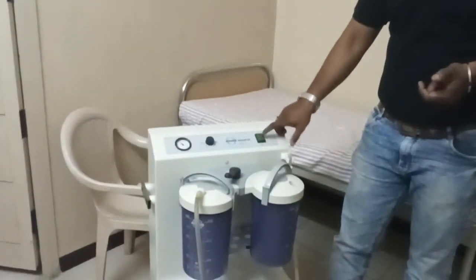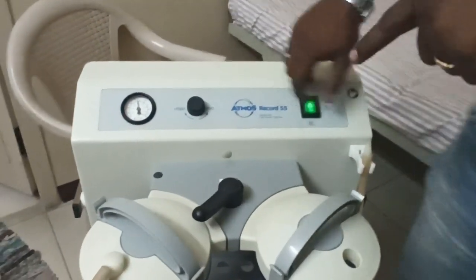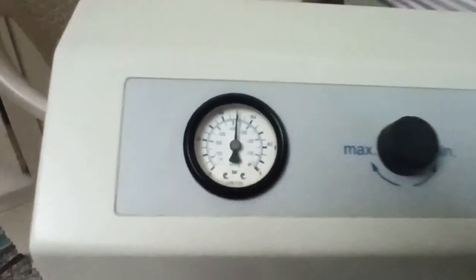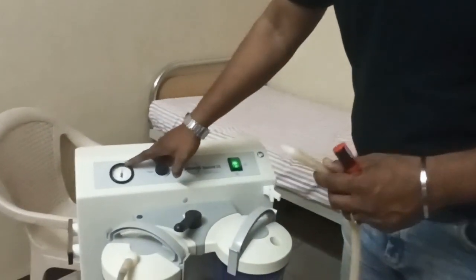When I visited the hospital, I switched on the machine. You can see the reading here — it is going to nearly 400. The suction tube is connected but it is open; I am not closing it at all. Still it is showing 400 value.